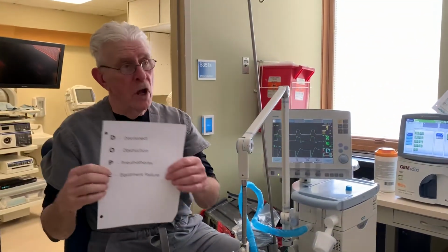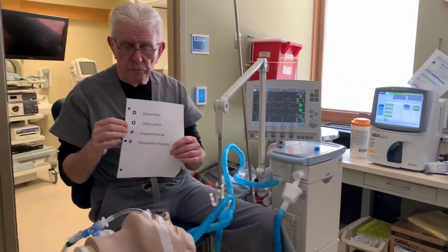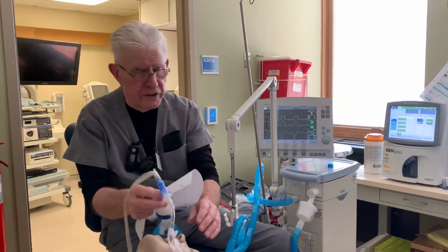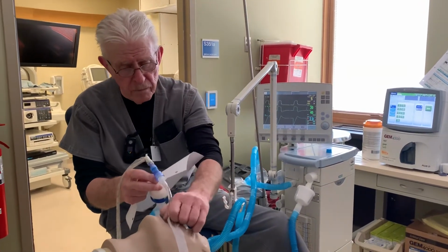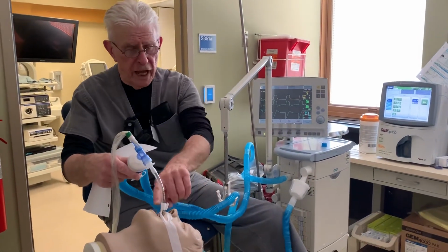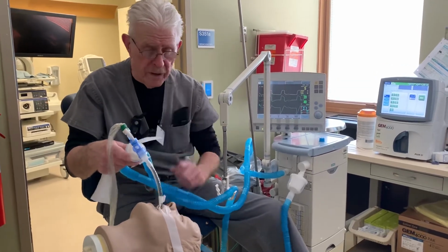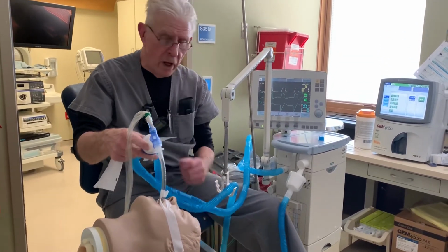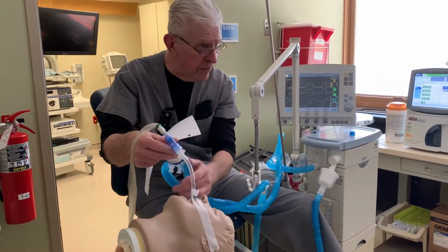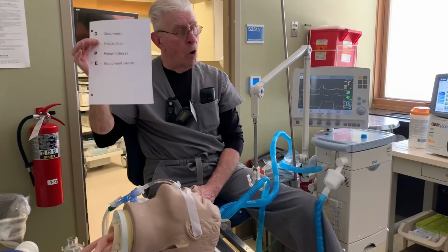Is there an obstruction? Well, that could be from mucus obstructing it. A kink usually creates a high pressure alarm, or possibly, if this is an oral endotracheal tube, the patient may bite on this tube. Now we usually put tube holders in when the patient has upper and lower teeth to prevent them from biting, but that is another way that this could become obstructed. Kinking is probably not something that would normally happen. We only keep a certain amount of length of tube outside of the patient's mouth. So obstruction would probably be related to mucus, or perhaps the patient.